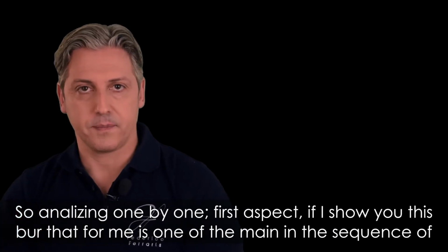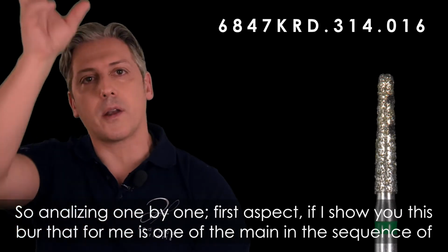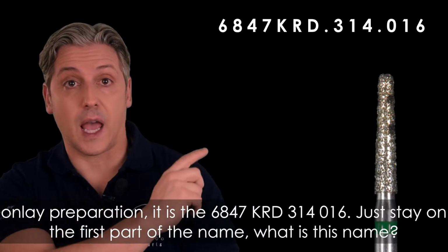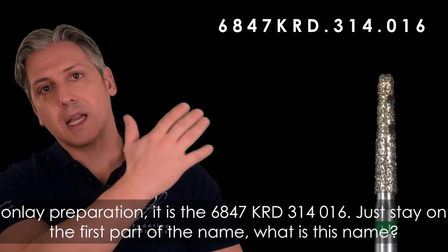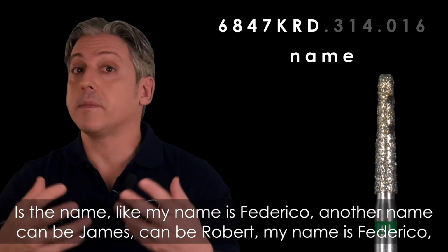So analyzing one by one. First aspect. If I show you this burr, that for me is one of the main in the sequence of onlay preparation, the 6847 KRD 314 016, okay? Just stay on the first part of the name. What is this name? It is the name.